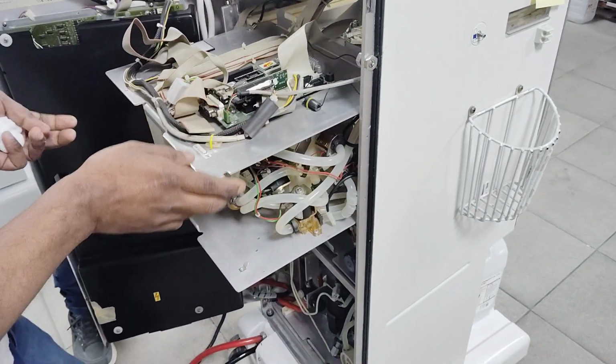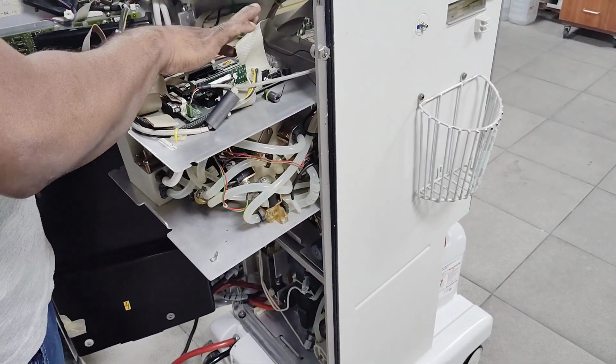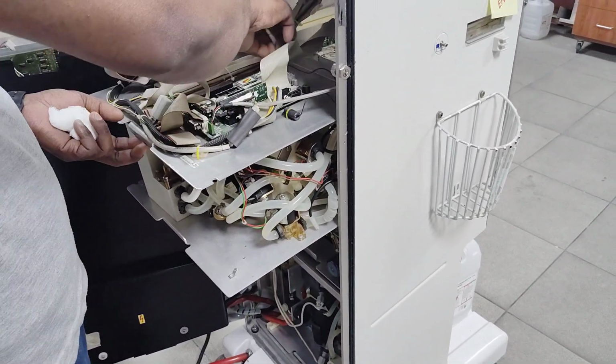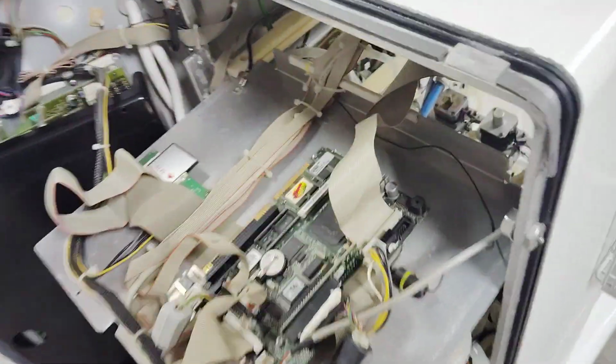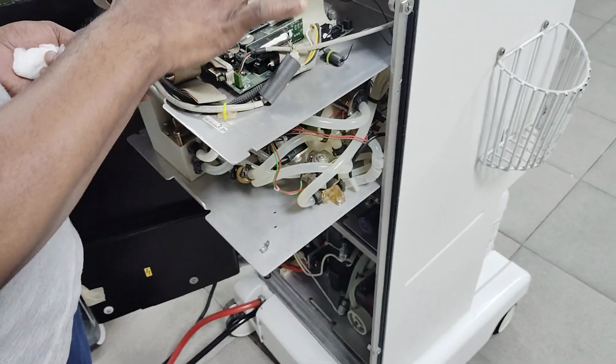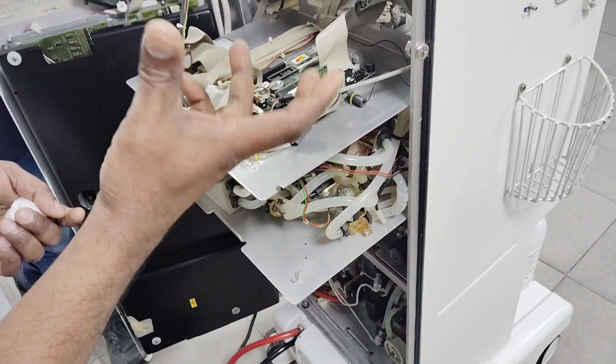Okay, so this is the RAM, and there are no additional things. The cooling is there, the cooling fan. In some older ones we have a cooling fan, but there is no cooling fan over there. They put this one instead. So it's like a computer, a mini computer, a small motherboard, but not the same type of computer motherboard.